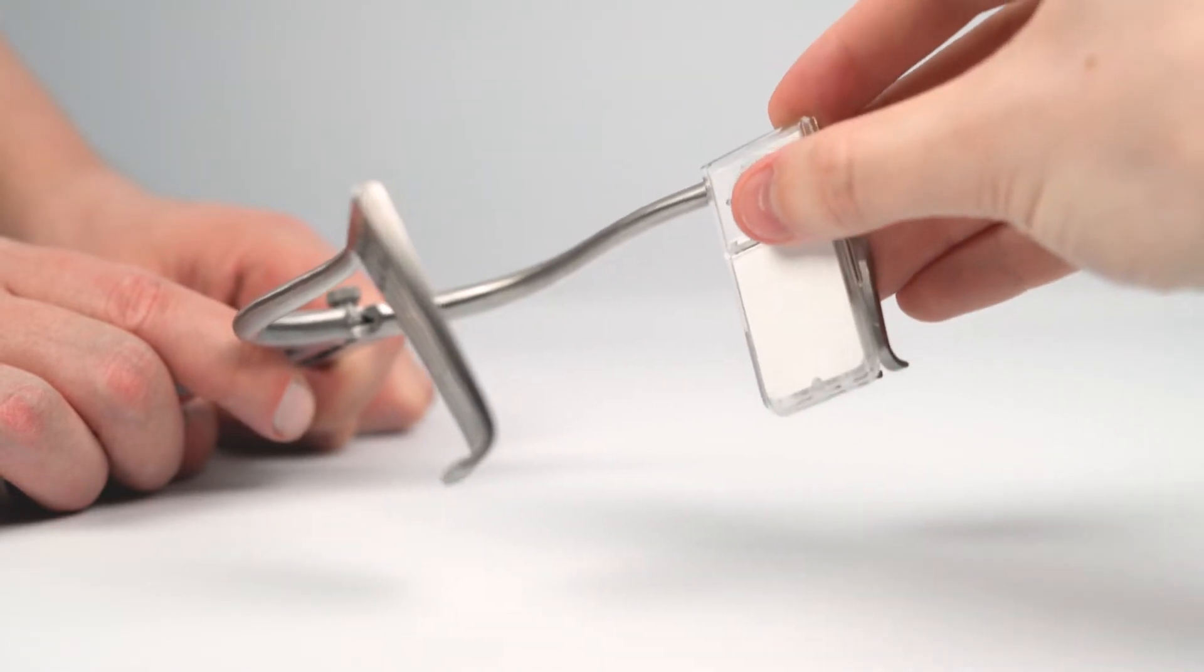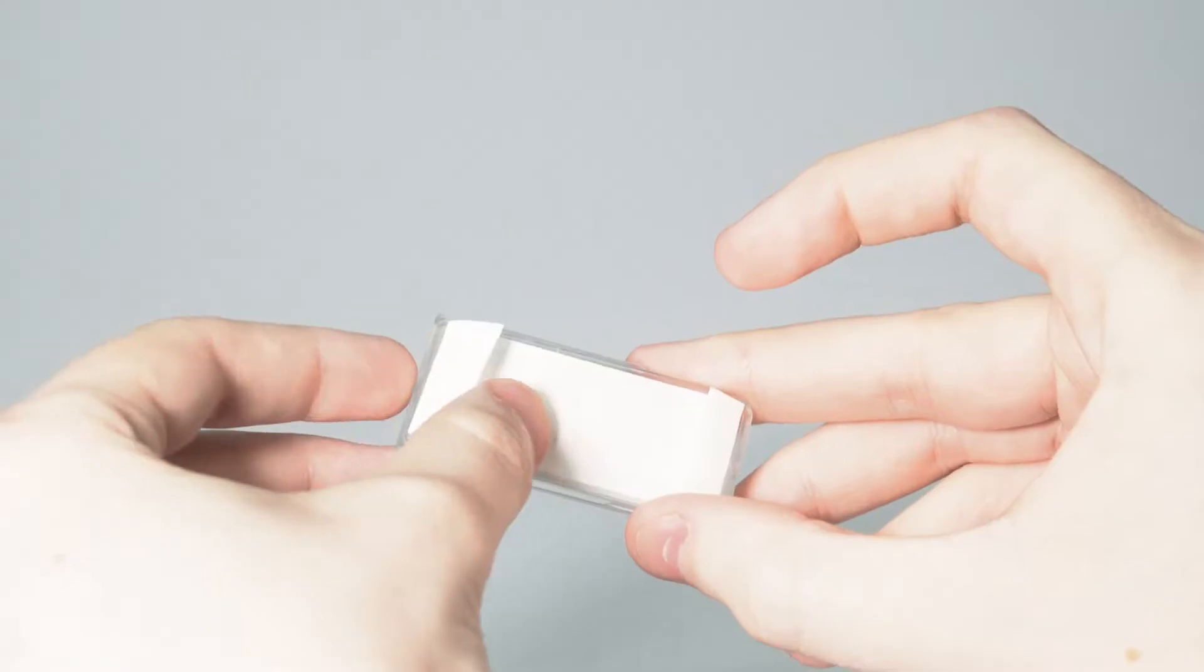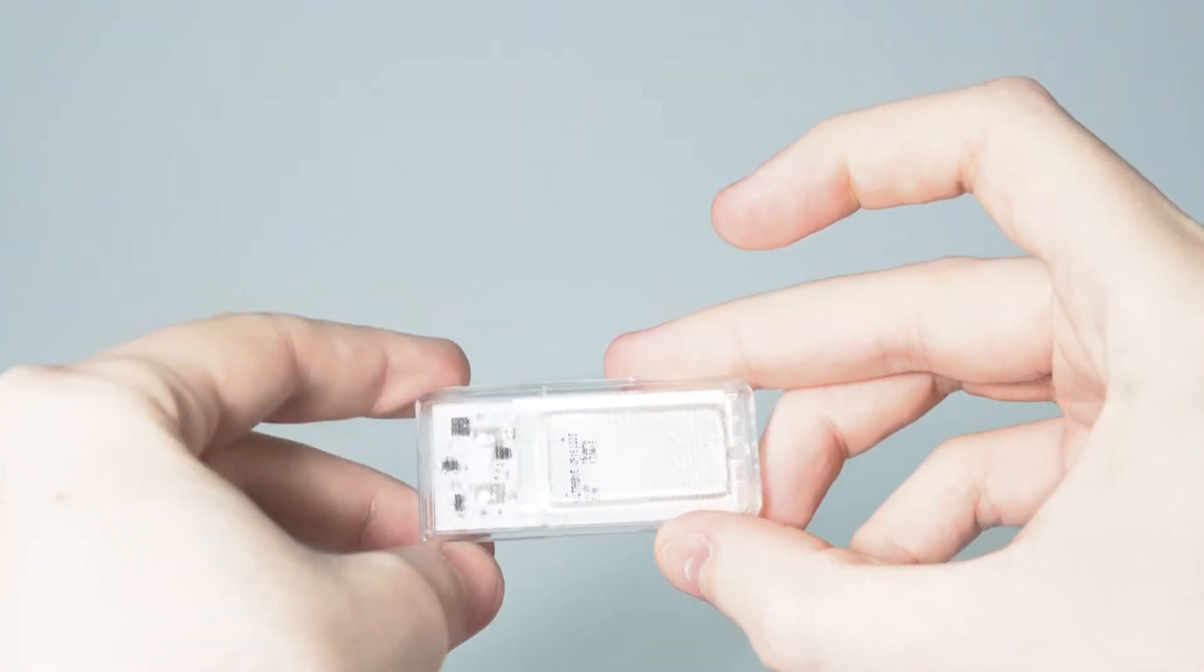The OpLite can be affixed to existing surgical equipment thanks to its specially designed sticky back. It's as simple as stick it and click it.